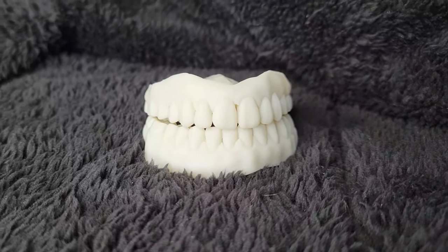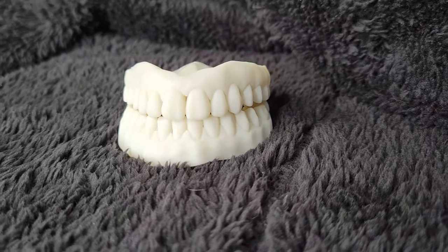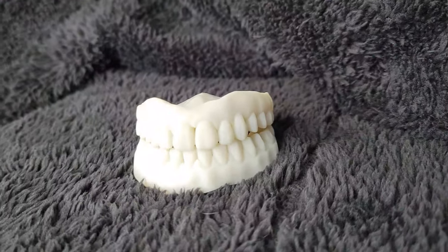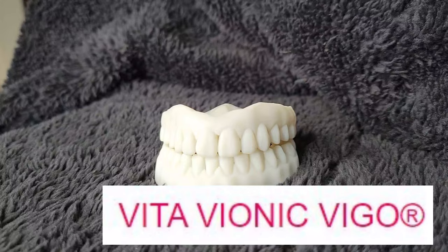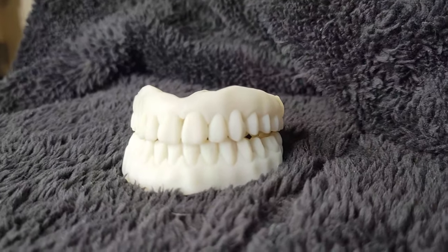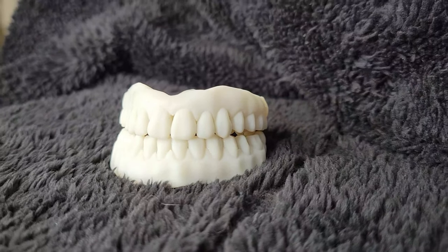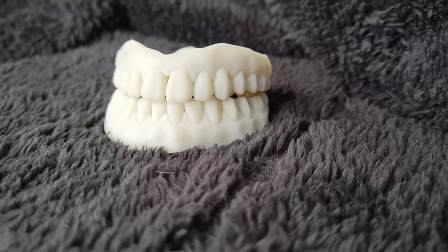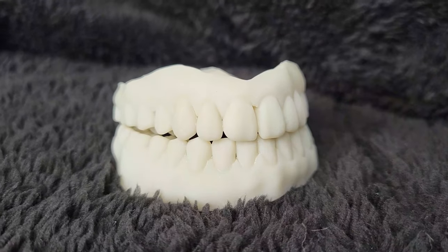And when you get your denture, they'll be pink. The gums will be pink when you get your final. And the tooth is different. They're using a tooth from Vita Vionic Vigo that they're going to place in there. It's a better tooth than having a printed tooth. It'll have definition to it like your real teeth do. And they come in three different shades. But we'll talk more about the tooth in another video.